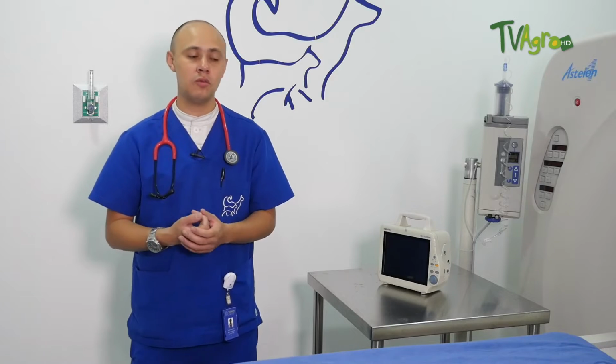Usually the most common is that patients who enter the tomography area are patients in critical care or in critical condition. For that reason we have an area in charge of anesthesiology, which I direct, where the idea is that the patient has a very short anesthesia. This device takes approximately 30 to 40 seconds to acquire the images, but anesthesia requires a protocol. Usually the entire protocol takes between 15 and 20 minutes, which is the time we have planned for the patient to be under anesthesia.